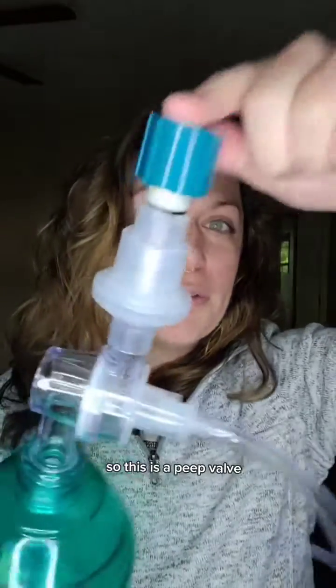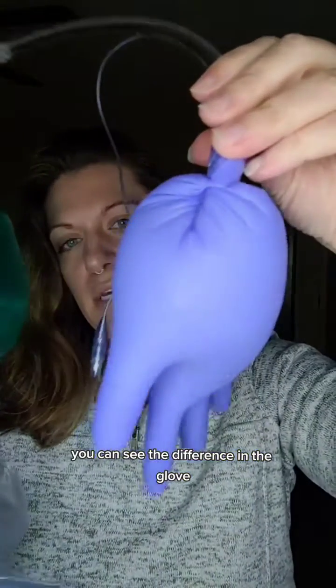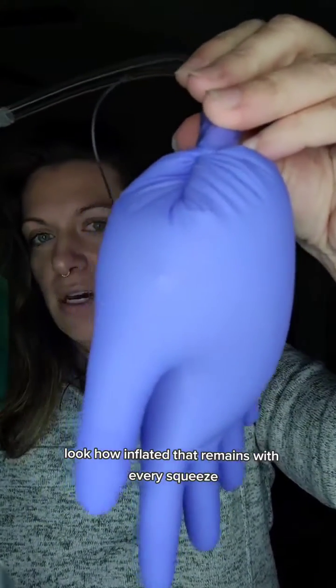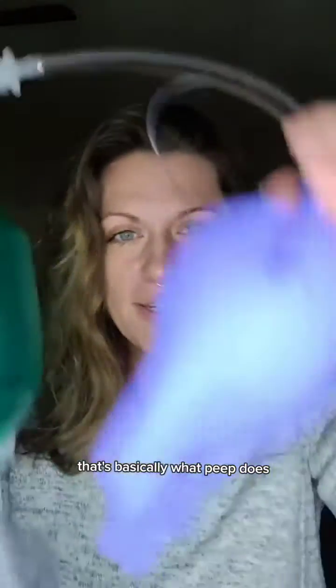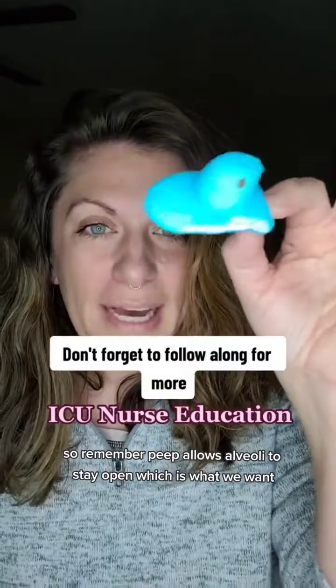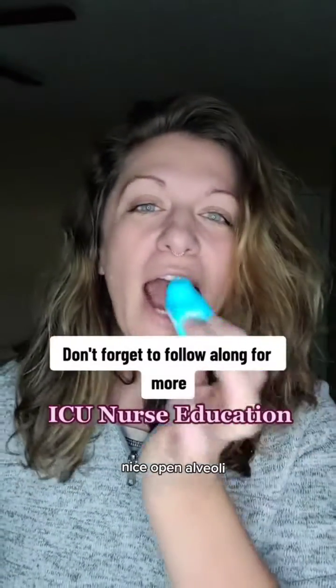However, if we add PEEP — so this is a PEEP valve set at 15 — you can see the difference in the glove. Look how inflated that remains with every squeeze. That's basically what PEEP does: it keeps that alveoli nice and open, which is what we want so we can adequately oxygenate these people. So remember, PEEP allows alveoli to stay open. Nice, open alveoli.